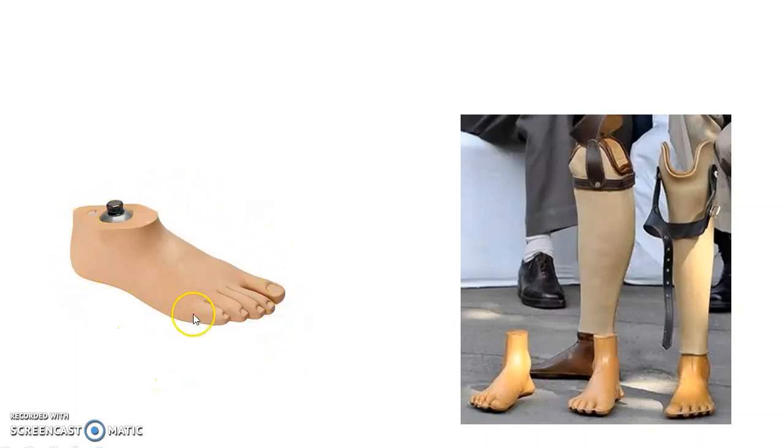This picture shows a SACH foot. This picture shows Jaipur foot. Remember, in case of Jaipur foot, the patient can walk barefooted and he can walk on uneven surfaces. It is cheap and it is more durable.